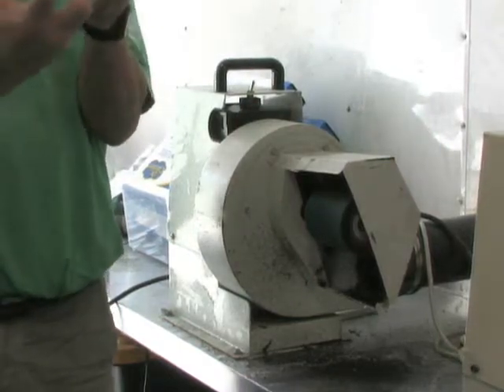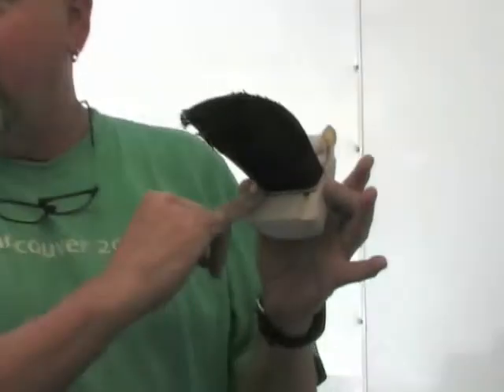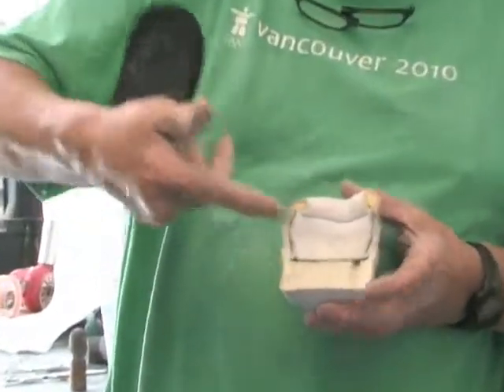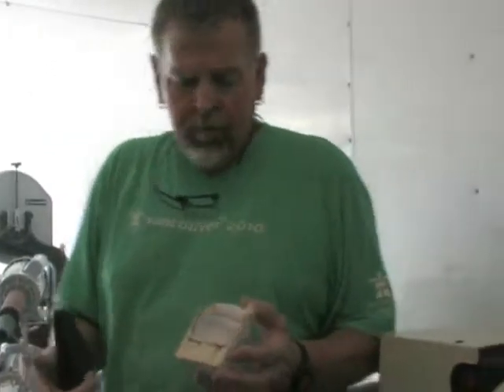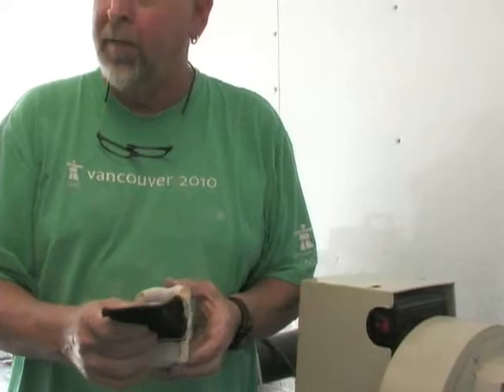It's starting to look like an orthotic! One thing I love about this shoe is it's rock solid — I have to have a solid platform to put an orthotic in. But notice how it doesn't go in — it's too wide. What I haven't yet done is undercut. Do you see the cue ball of the heel here? It cuts in. If this is straight and the heel is tapered it's not going to work — round peg, square hole. So I have to grind this to fit into the heel.